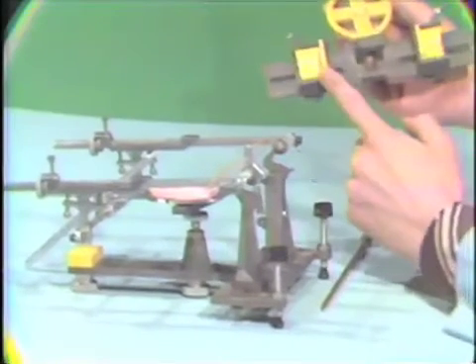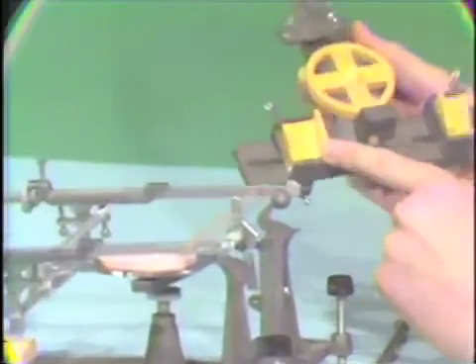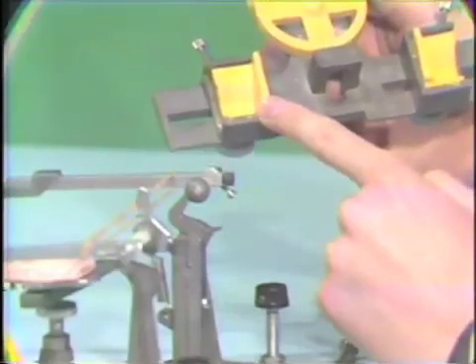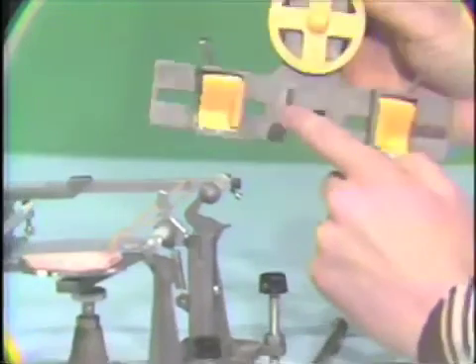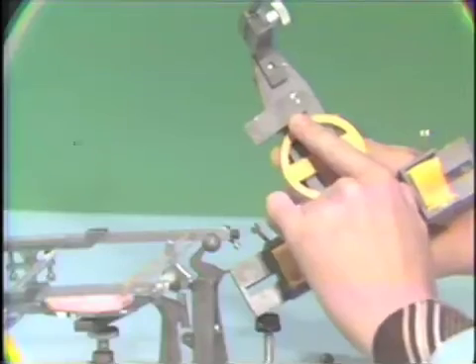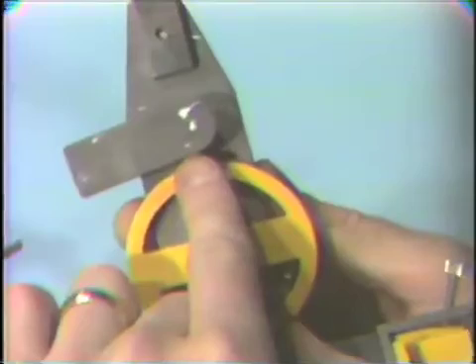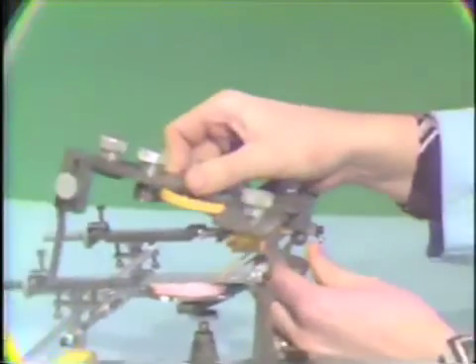We'll want to insert our blank condylar fossas in the condylar areas of the upper member. We've also put on our third reference point indicator here. This will contact the third reference point marker on the face bow. Okay, now we go ahead and place this on the articulator.